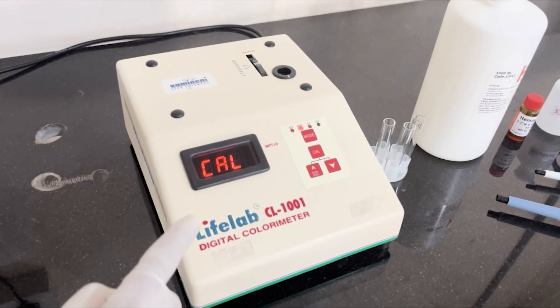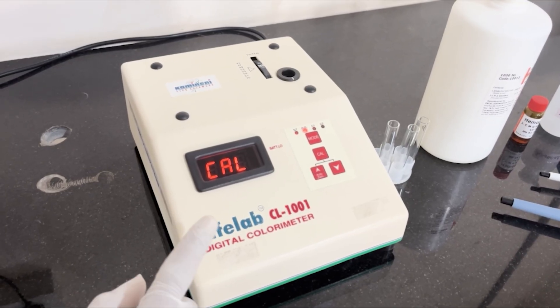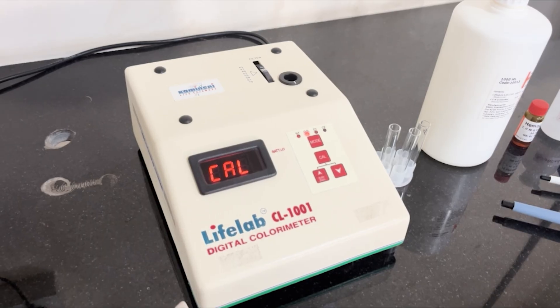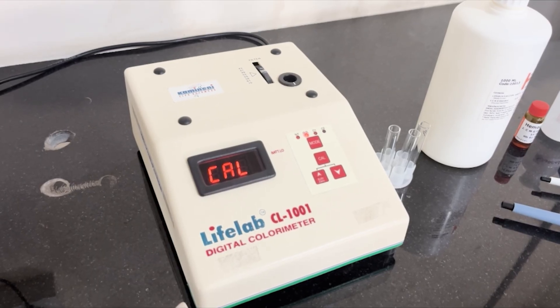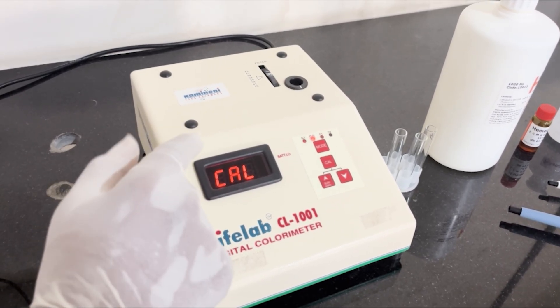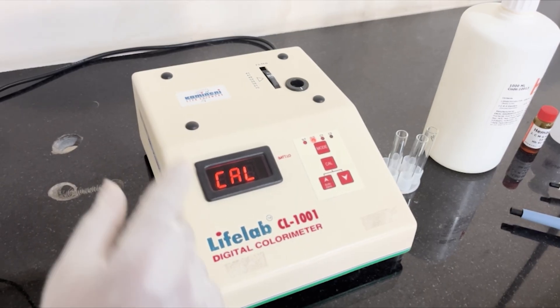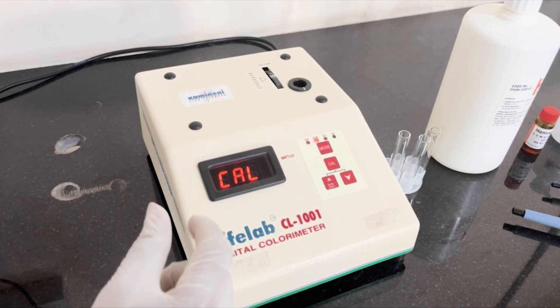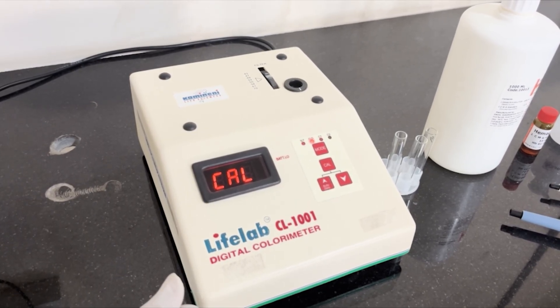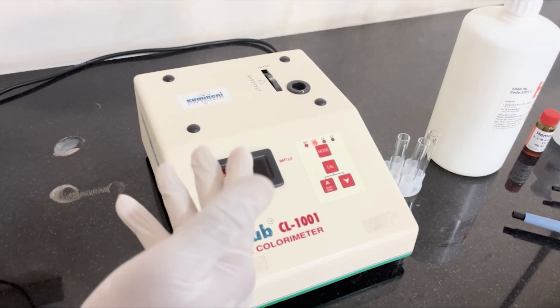This is the digital colorimeter. It works on the principle of Beer-Lambert's law, which states that the absorbance of light by a solution is directly proportional to the concentration of the solute and the path length of the solution.